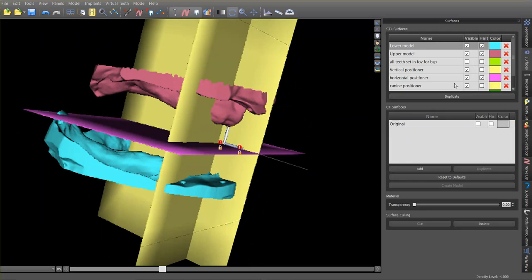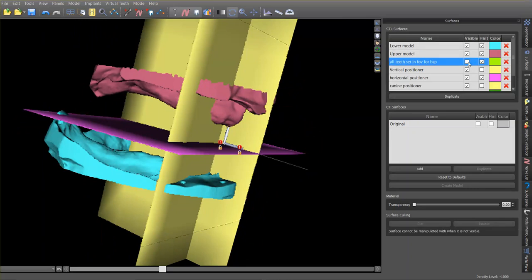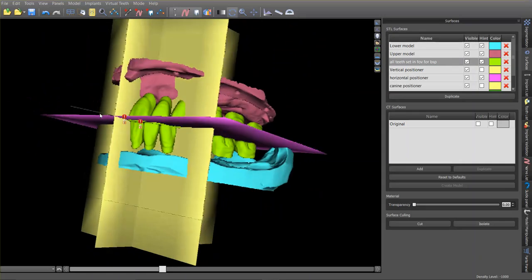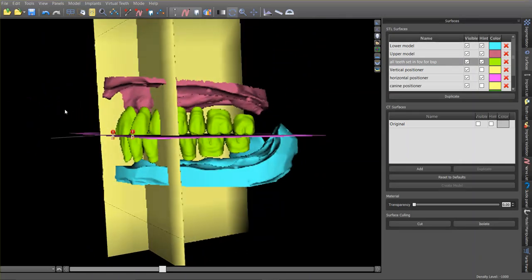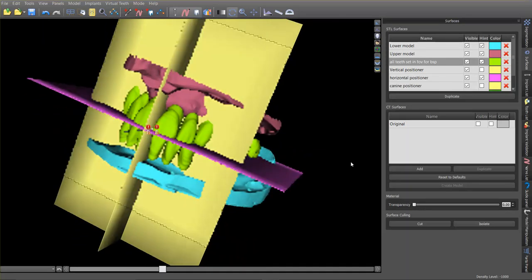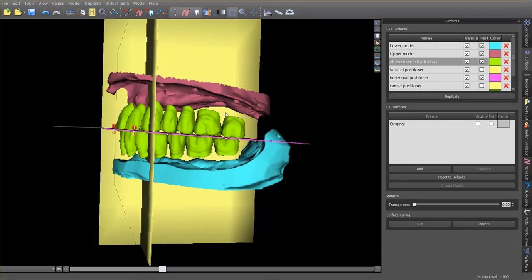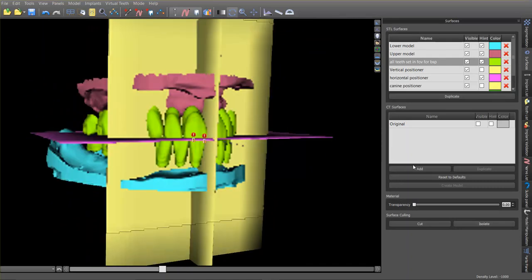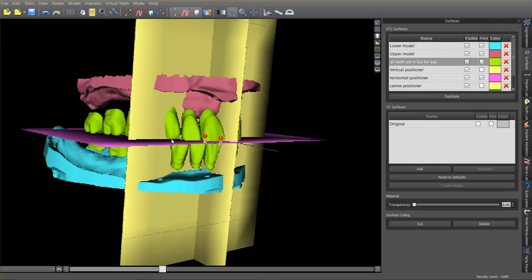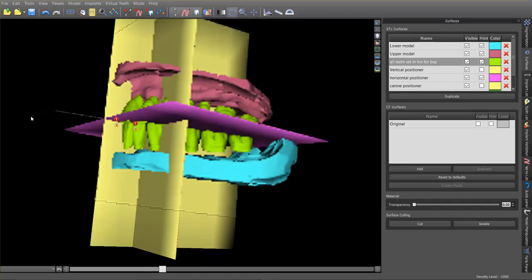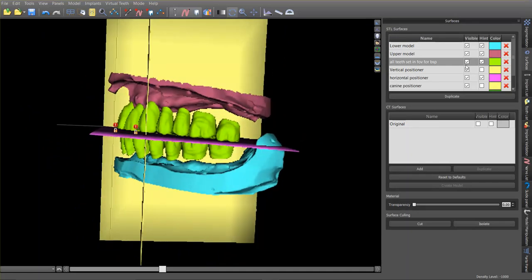I won't elaborate too much here, but suffice to say this is all going to be automated within Blue Sky Plan. Dr. Marco Tadros and I have worked on this and have developed a nice method of setting teeth that will allow you to conform them to different arch shapes. The idea is that you'll bring the teeth in as a whole unit, position them to these parameters, and then make fine adjustments. You can see we're passing through the cusp tips of the canines, following right through the midline, and the occlusal plane is set to follow this.